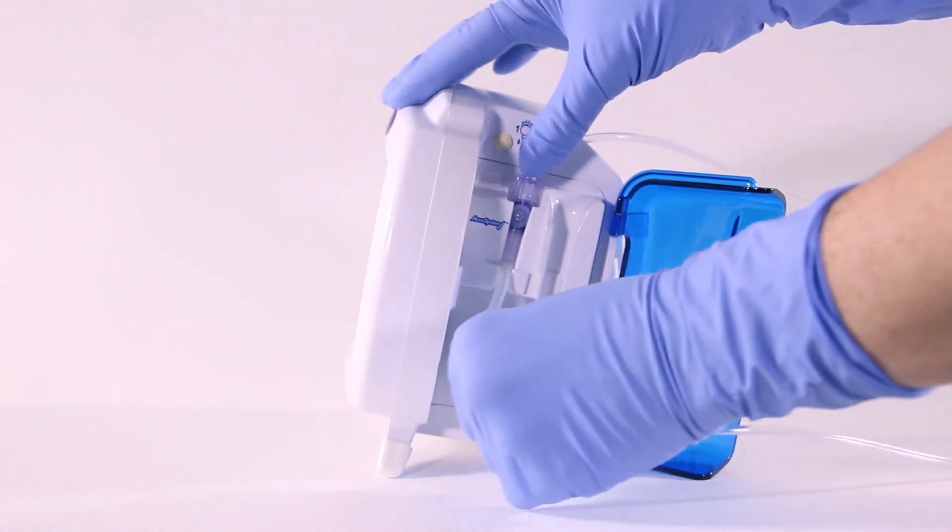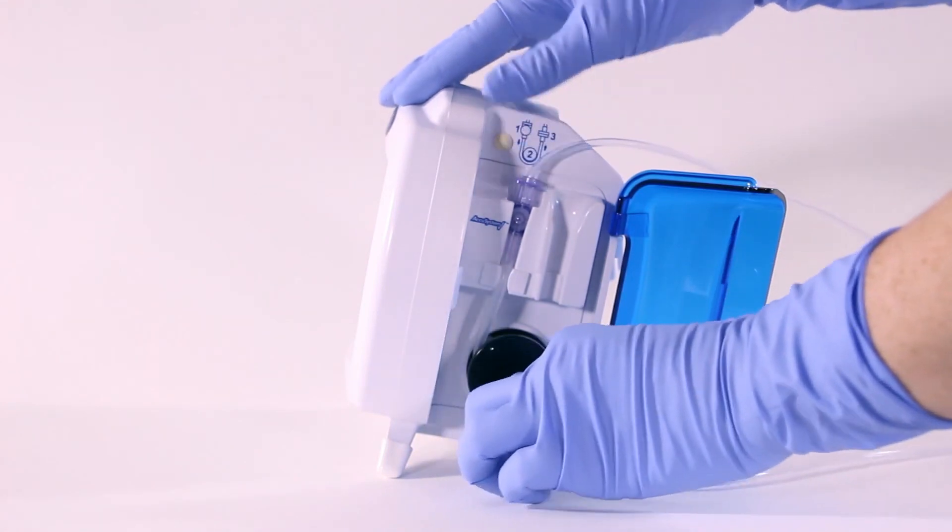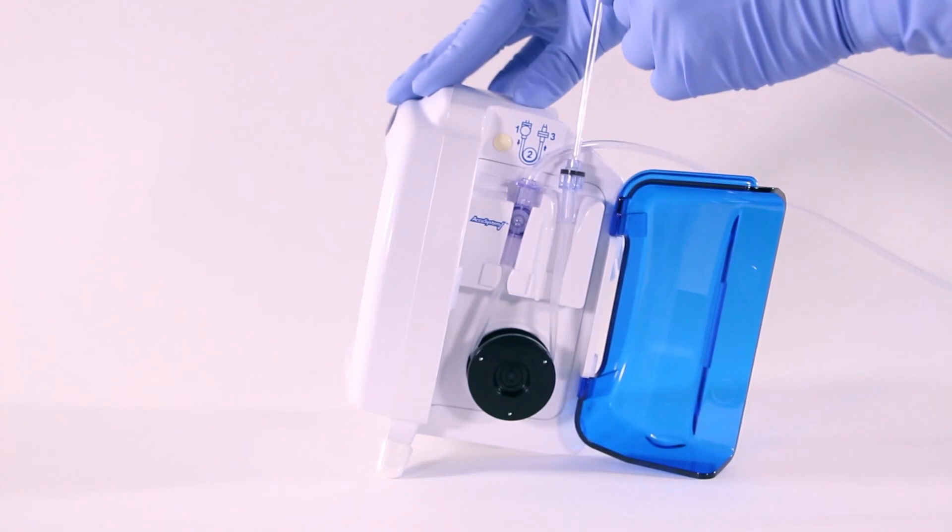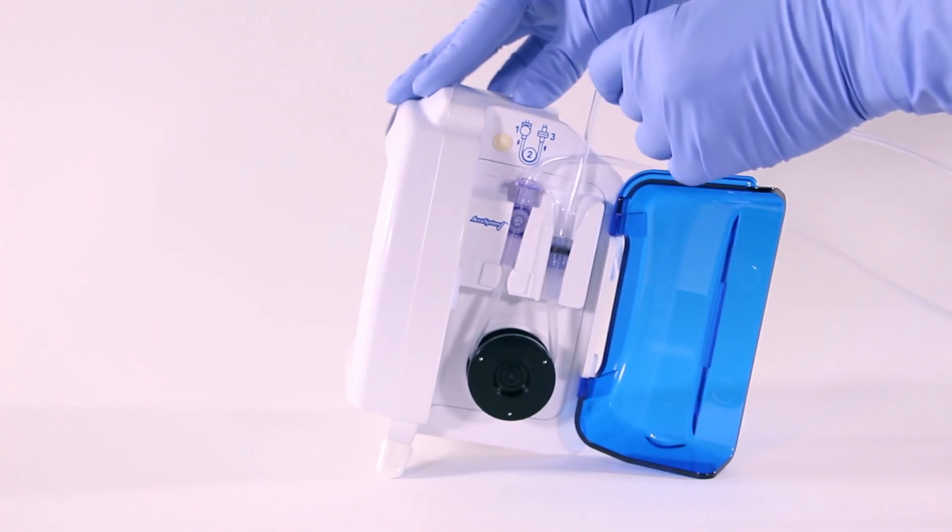Grasp the black-green retainer and gently wrap the tubing counter-clockwise around the rotor. Carefully pull the black retainer end upward to position it over the slot on the right and then lower the retainer into the slot.